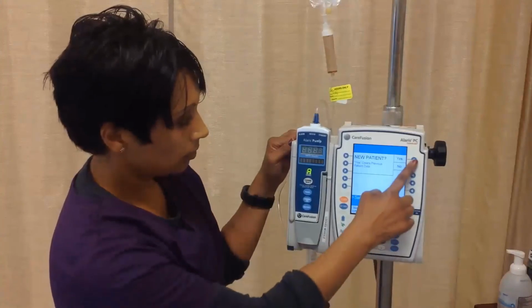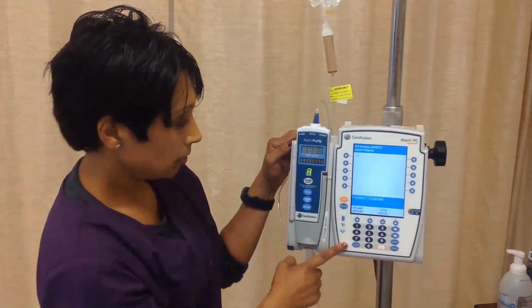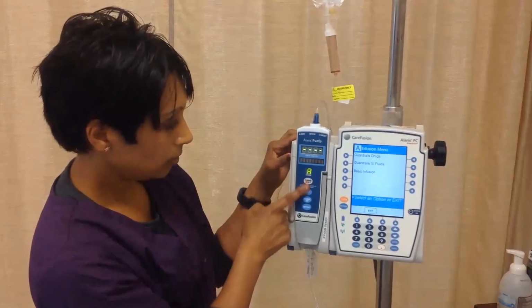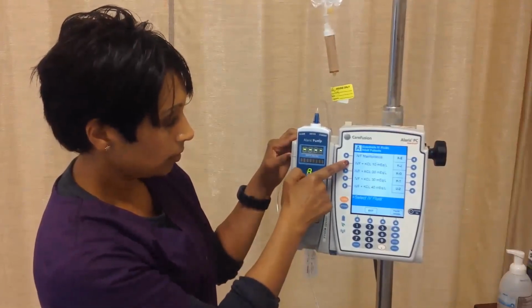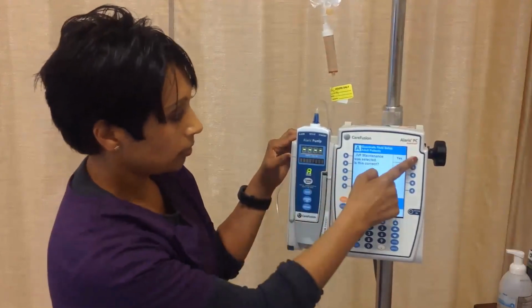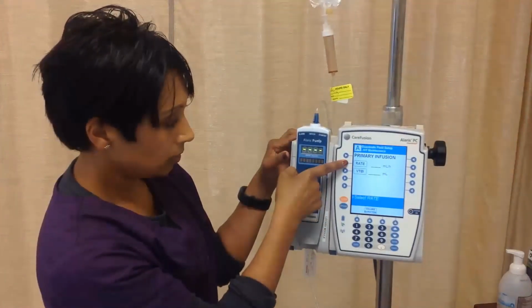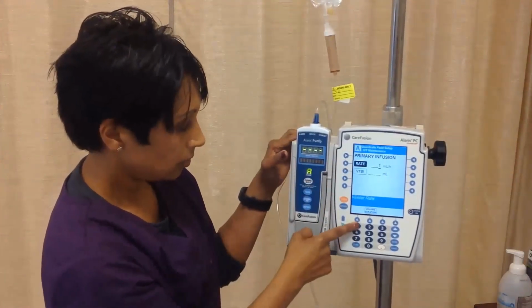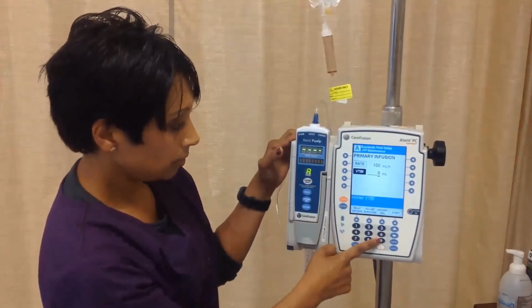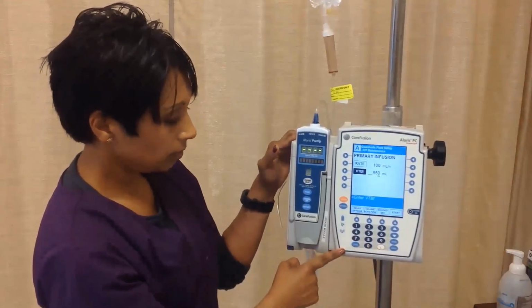Now that the pump is on, follow the prompts for new patient settings. Push the Channel Select white button found under the letter A. Now select Guardrail IV Fluids from the menu and then IVF or IV Fluid Maintenance. Continue to follow prompts to confirm selections. Now program with the rate at which you will be infusing per orders and the VTBI or volume to be infused. The rate is 100 milliliters per hour and the VTBI for this 1,000 milliliter bag will be 950 milliliters.